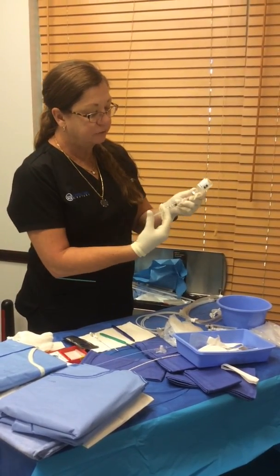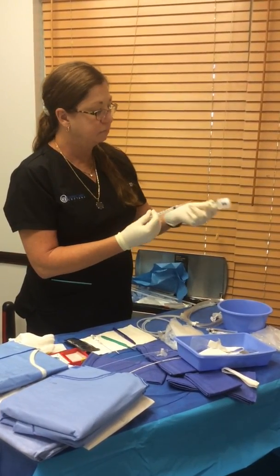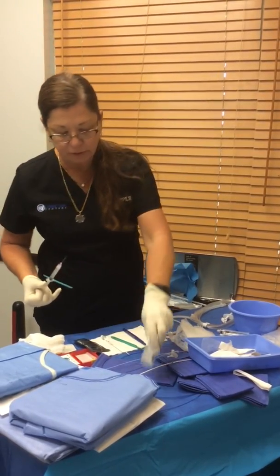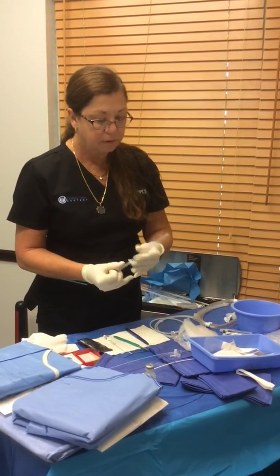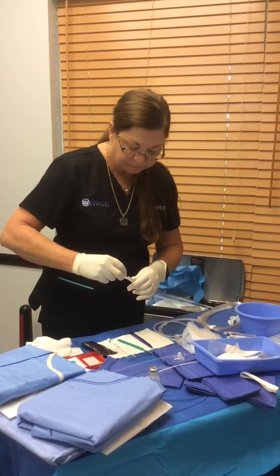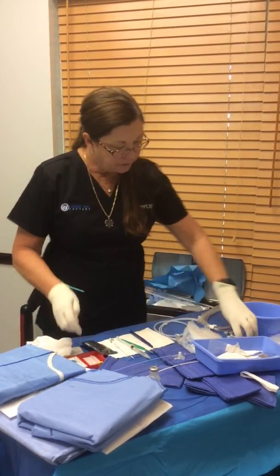Put this in here, make sure the plunger goes all the way down, and then pull back. There's no measuring — just load it up and go. Put the little needle back on, and then get your flush.